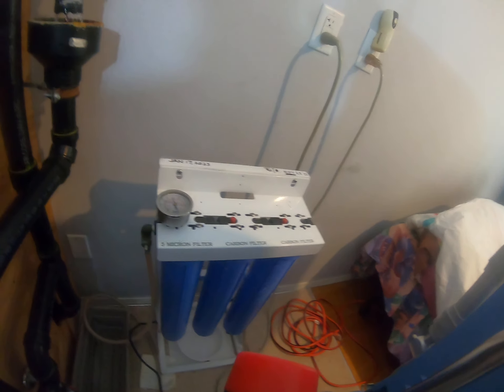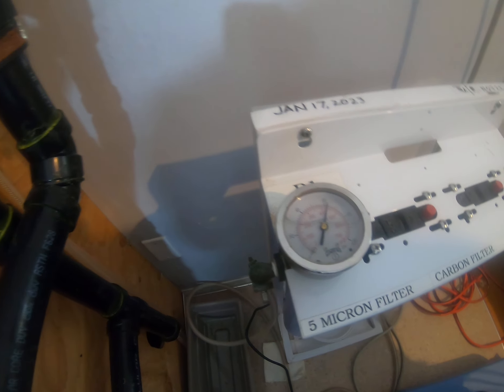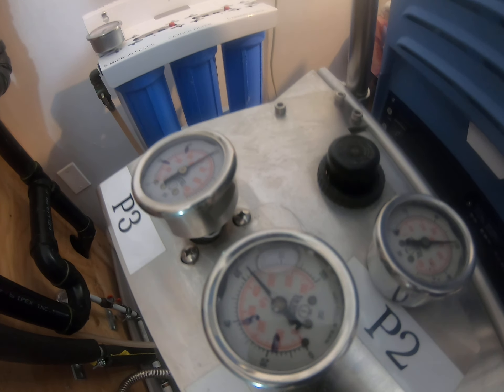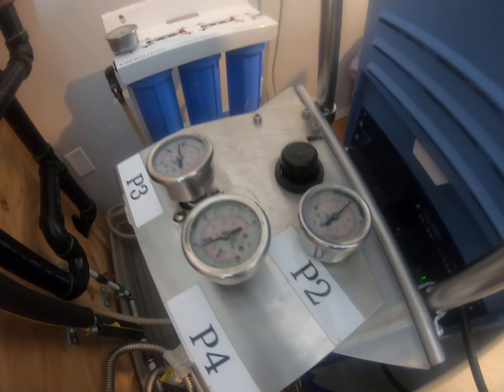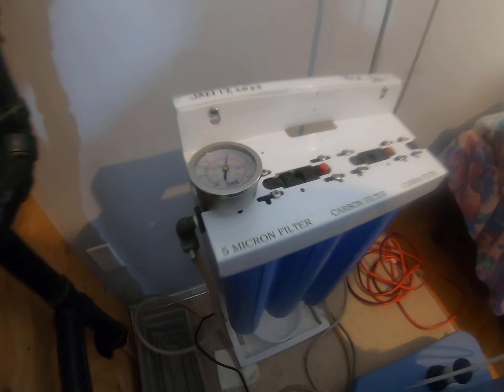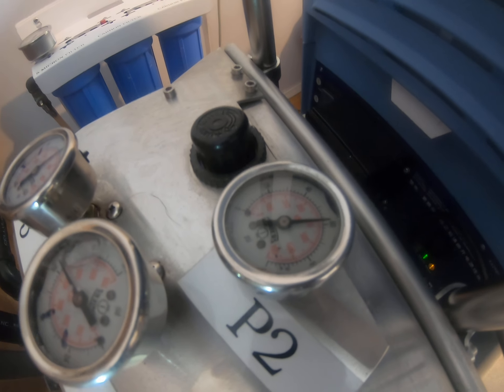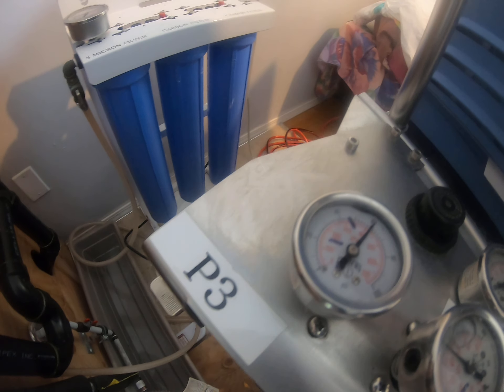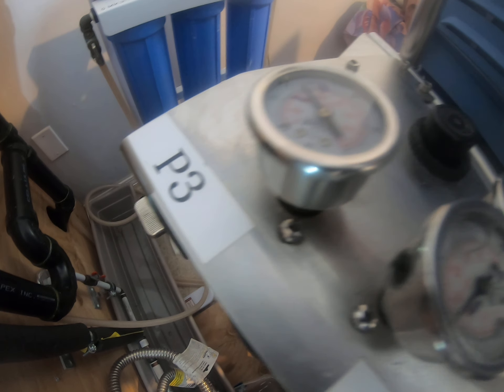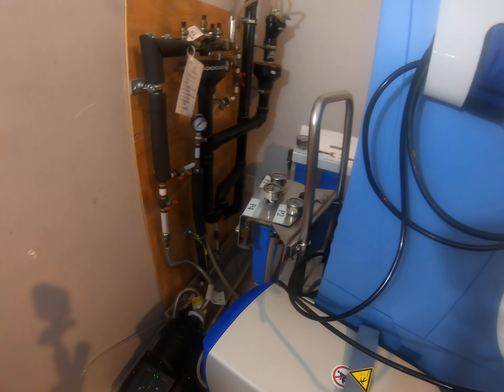We get the maximum reading here — we got 62 to 63 as pressure one, and this one is 59. So we have 63 and 59. P3 and P4 are pressure one and pressure two, and you get the highest readings — 63 and 59. For the lower gauges we got the low readings: 36 and 38. So those are the pressures.